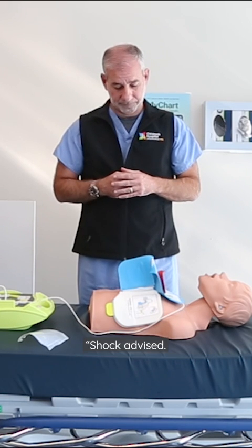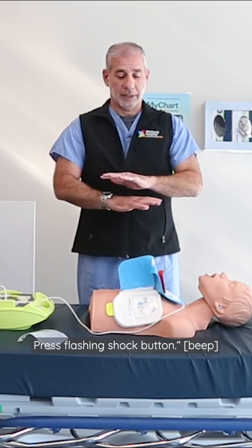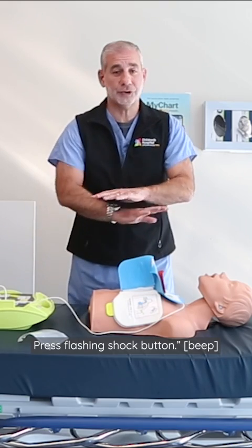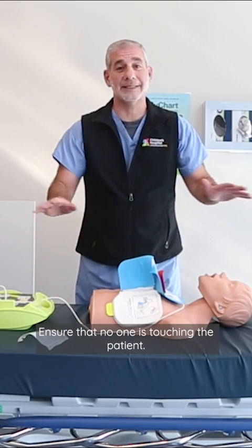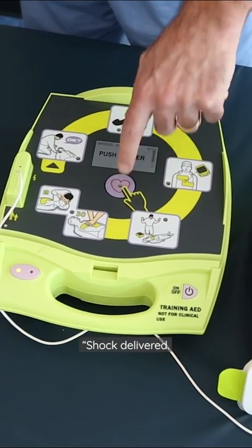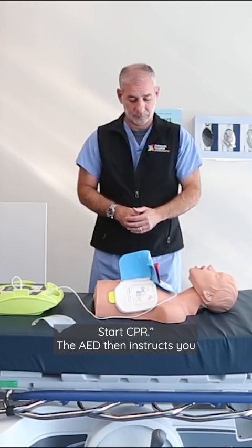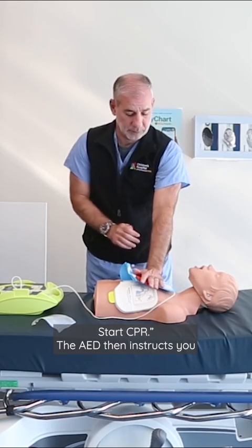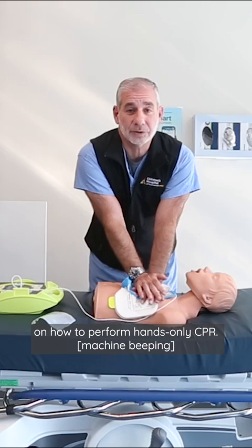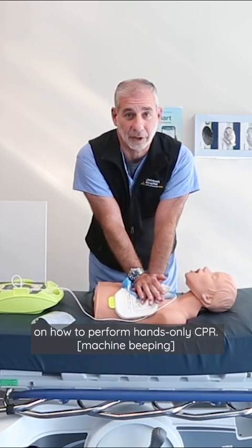Shock advised. Don't touch the patient. Press the flashing shock button. Ensure that no one is touching the patient. Shock delivered. Start CPR. The AED then instructs you on how to perform hands-only CPR.